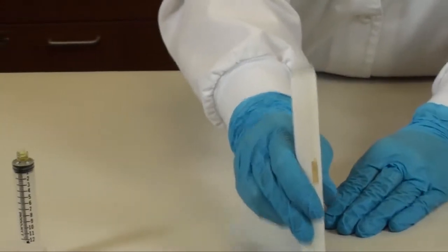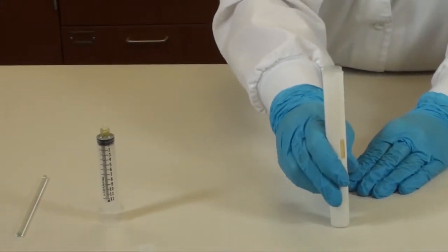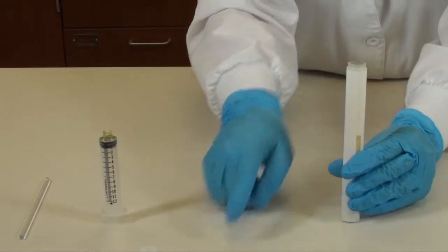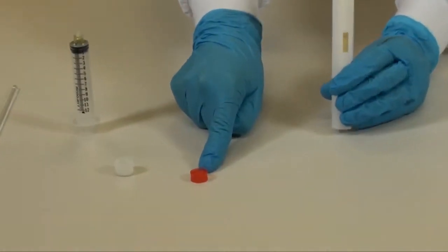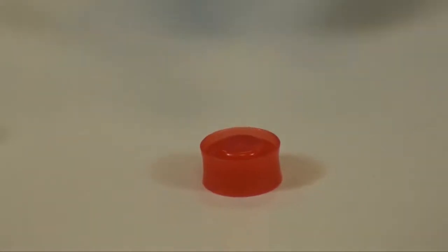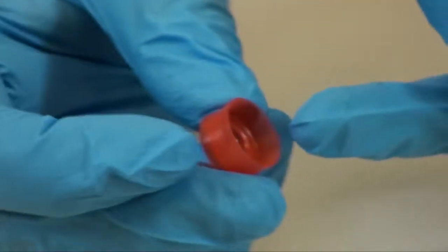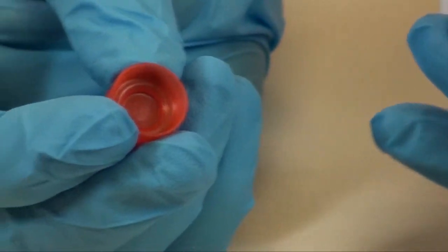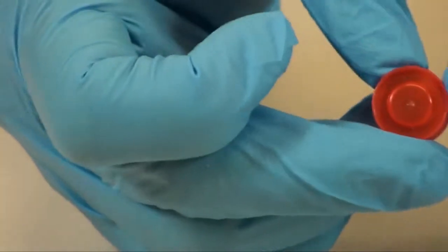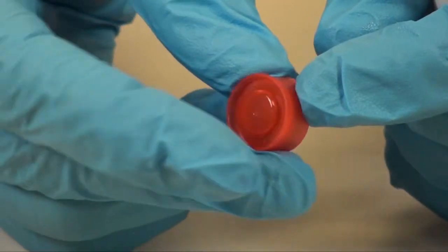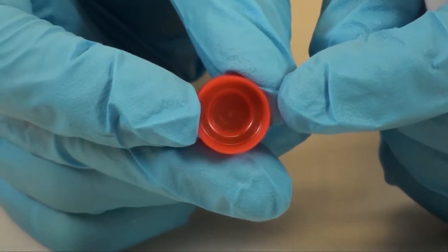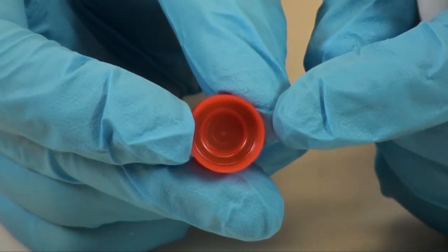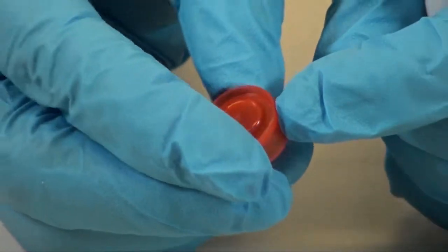Okay, once the gel is into the AccuPen, you need to go ahead and put the interface between the gel and the air. And this comes in two sides. One is indented, so my finger can fit in that side. The other is like a button. So an indented side and the button.